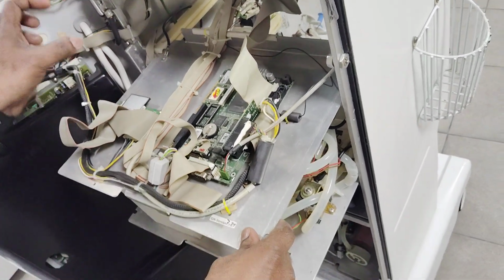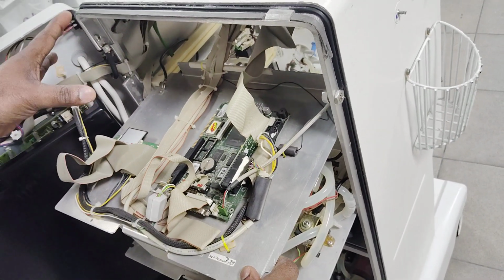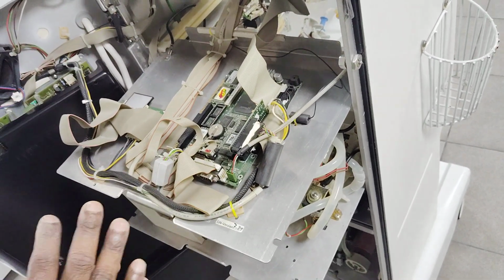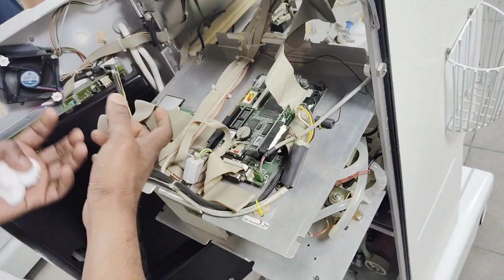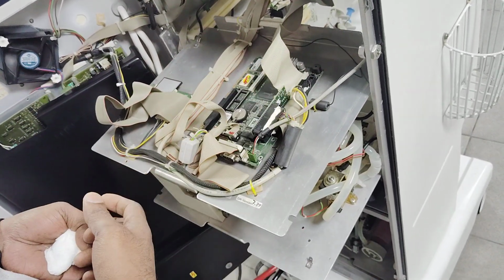This does not need a very big capacity. A maximum of 5 GB is enough. In the past we used to have a 60, 70 GB hard disk, but nowadays we are not going to get that type of hard disk and cables. So the manufacturers, in the new machines, have integrated the flash card in the motherboard itself.